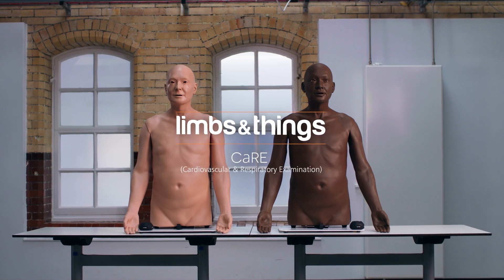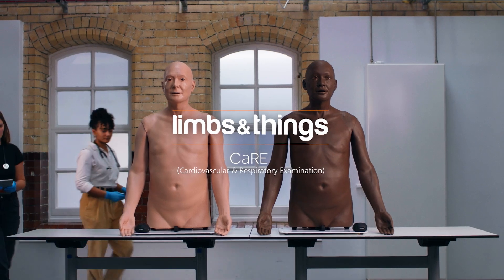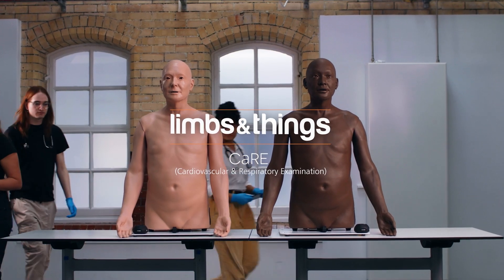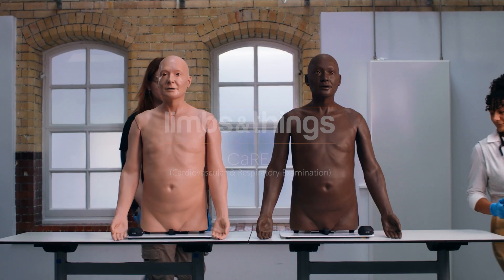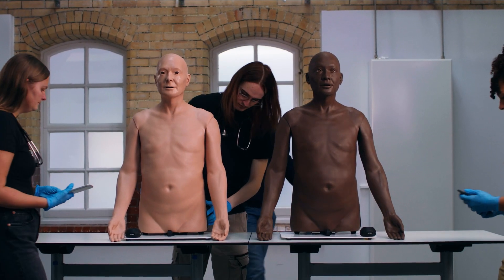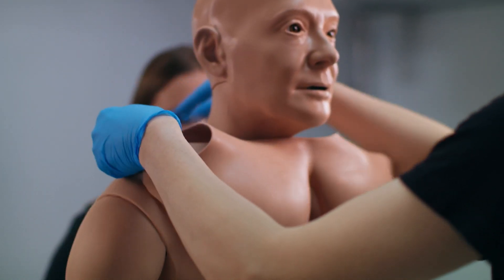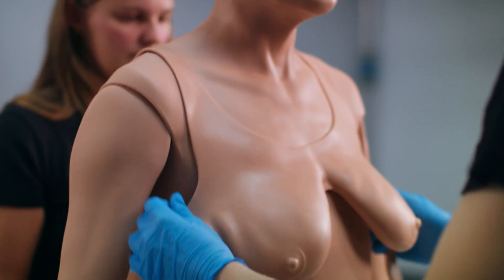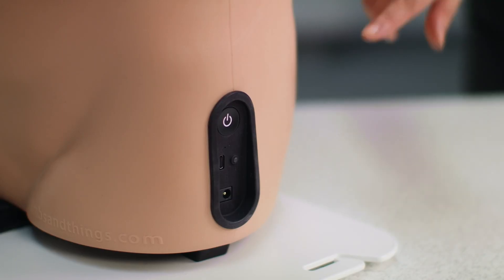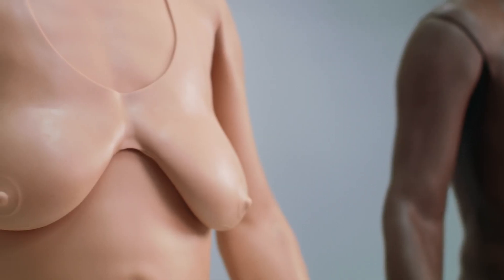Introducing CARE from Limbs and Things. CARE allows healthcare professionals of all levels the ability to confidently train in the identification and diagnosis of a wide range of respiratory and cardiac conditions and pathologies.